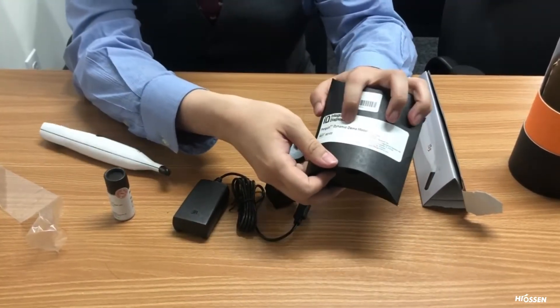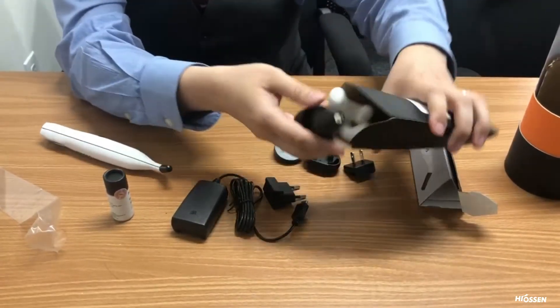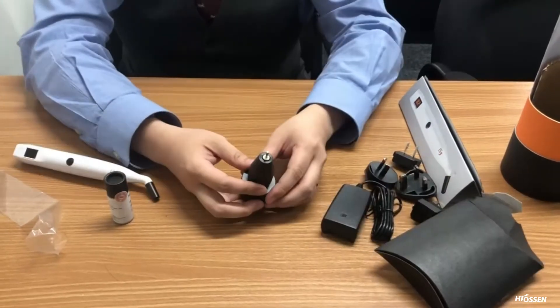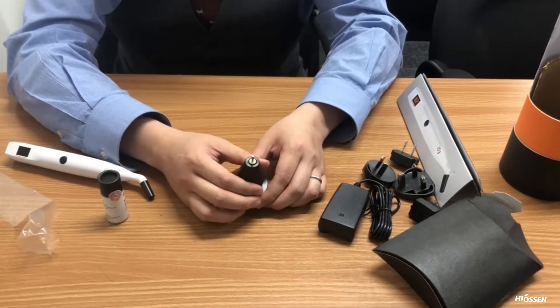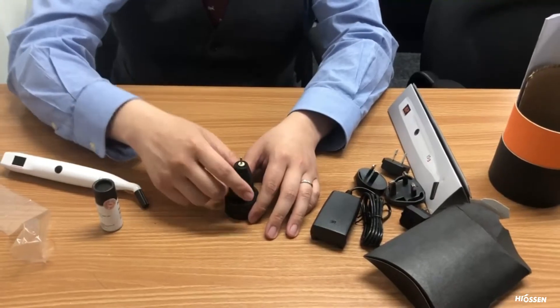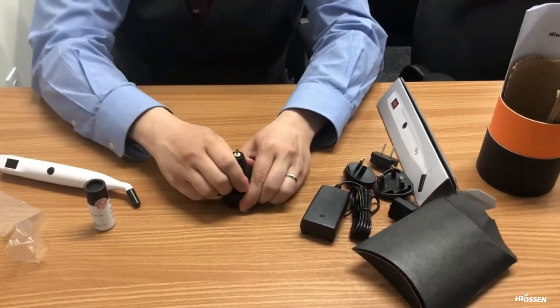If you open this Penguin Dynamic demo model, you can take out this little sample multi-peg that's been inserted into the demo product. You can righty-tighty-lefty-loosey — loosen it up and bring it down, which changes the level of stability of the fixture. I'm going to tighten it up a little bit.